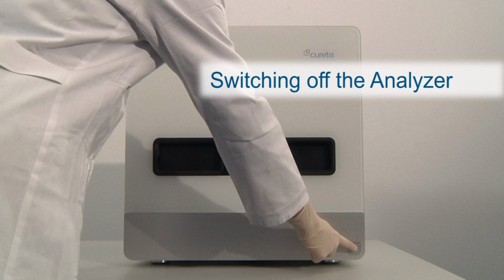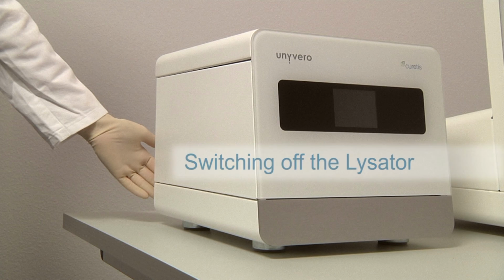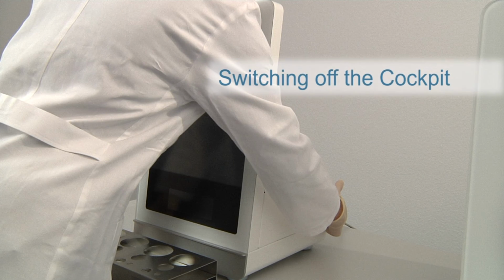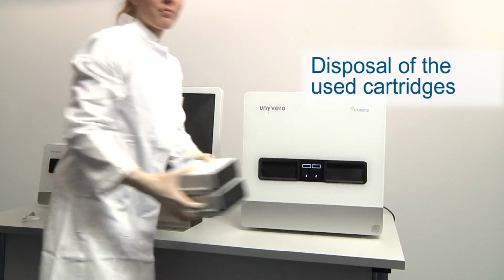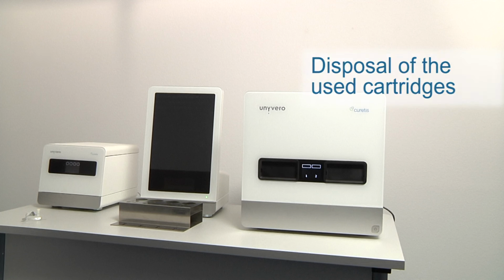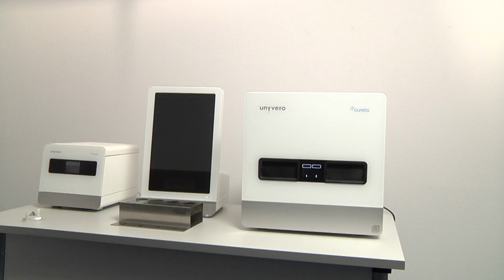Confirm your selection and turn off all of the power switches of the Unyvero instruments, just as you turned them on at the beginning. Finally, and to complete the workflow, dispose of the used Unyvero cartridges, like all other used consumables, according to the safety guidelines of your institution or your local authority.